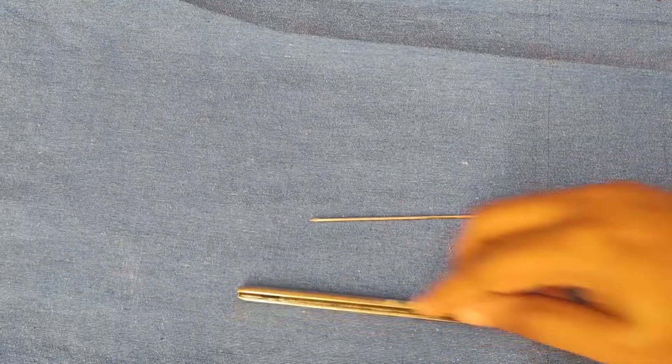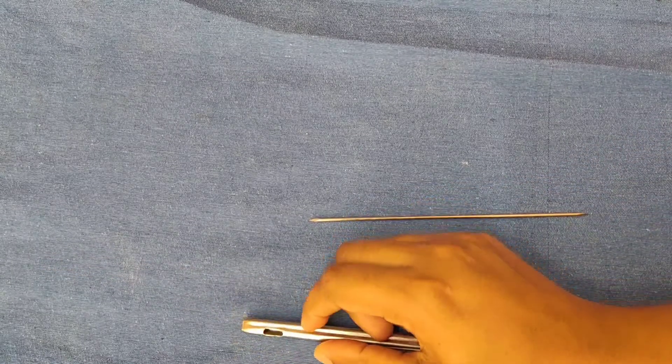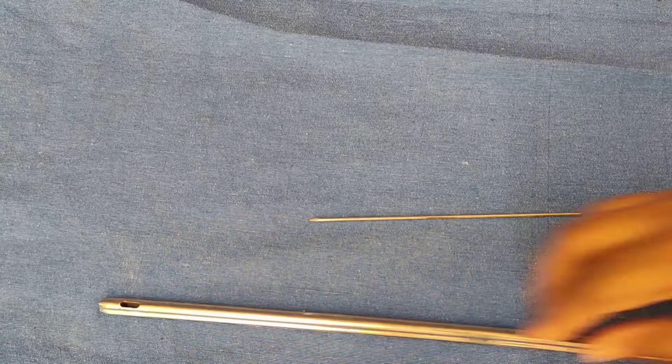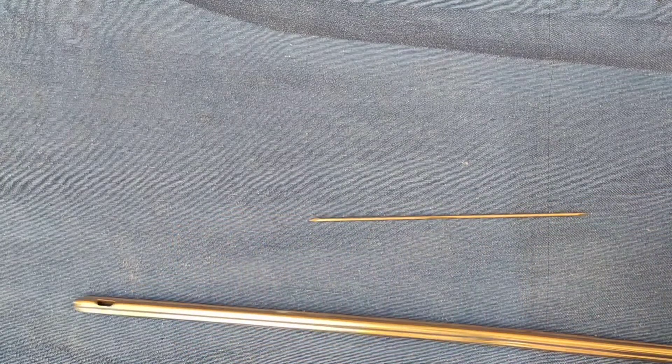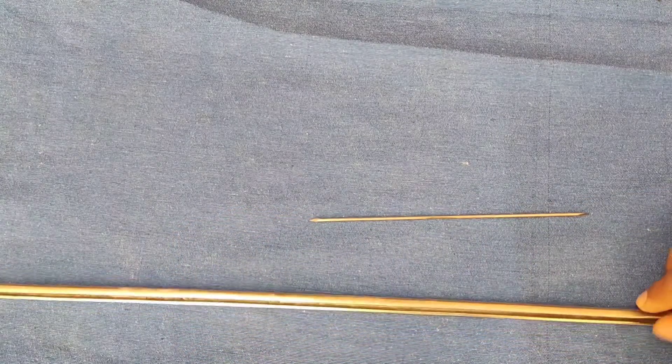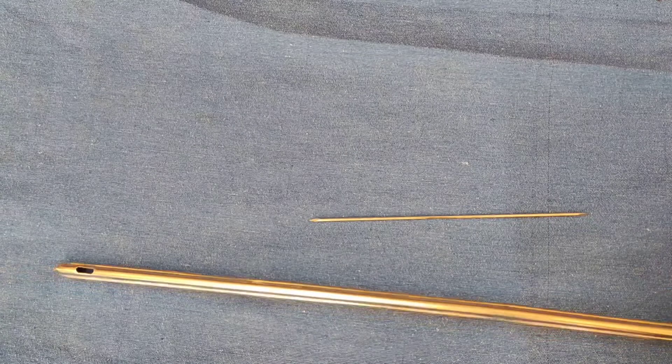The longitudinal metal bar which is opposite to the slot accommodates the body weight along the compressible surface of the bone.